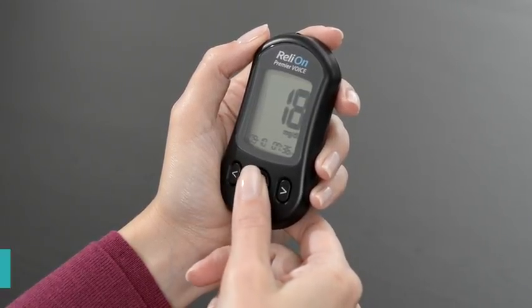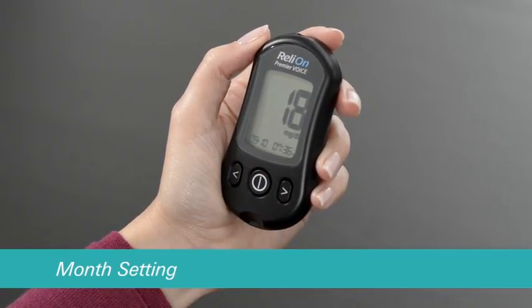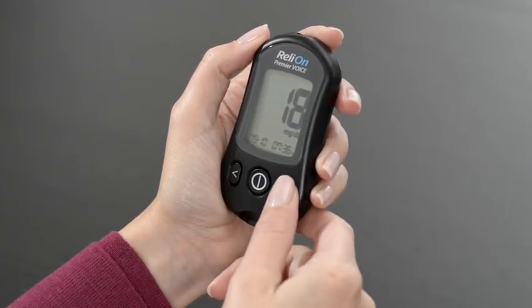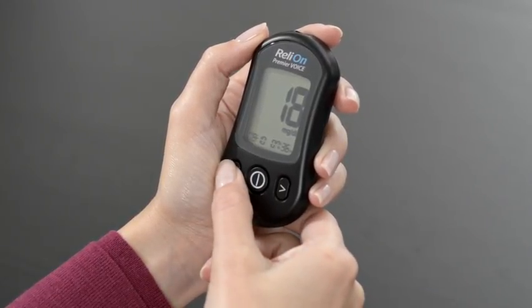Then press the center button to proceed to the month setting. Use the left or right arrow buttons to set the month.